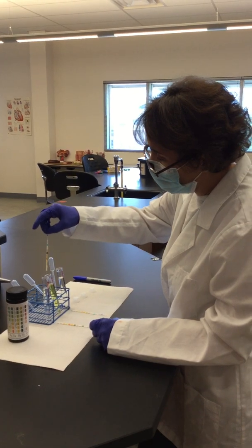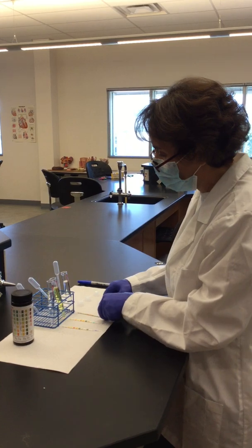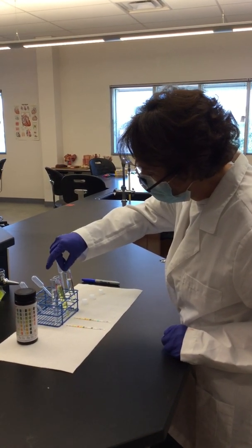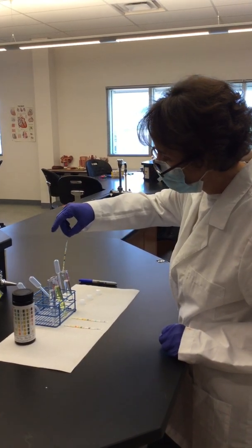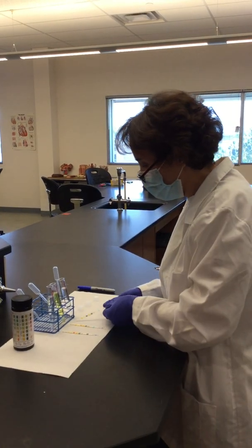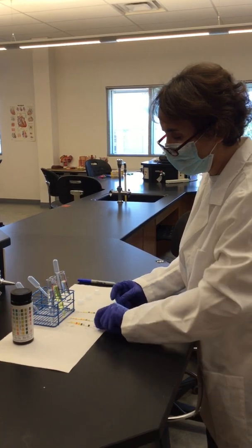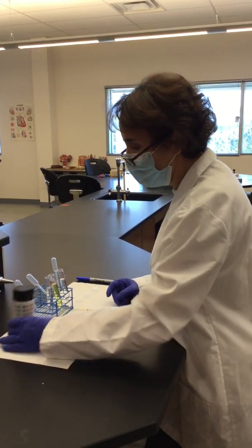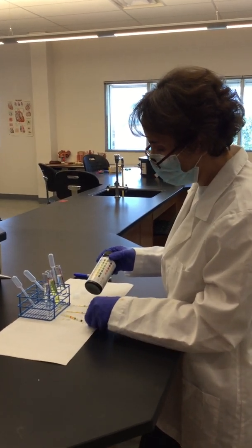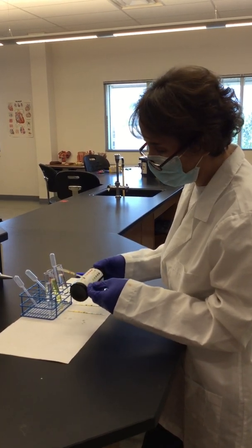We're going to get a little bit more time for reading it because I'm doing 3 samples at once. Even if you delay a little bit in the reading, it shouldn't change that much. Okay, so this is how they look. And in order for us to start reading, you just get rid of the excess of urine and put them here on one side. And these are artificial urine samples, okay?